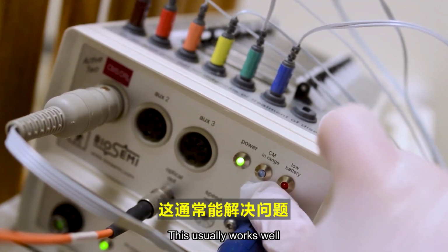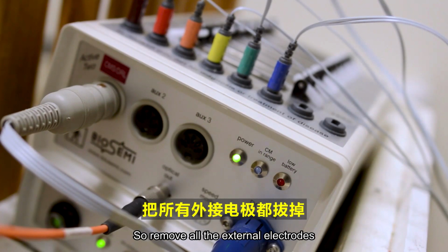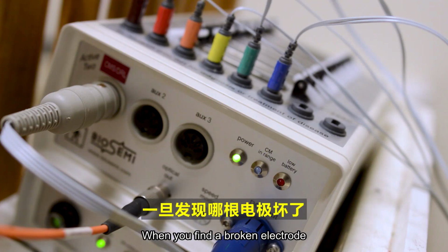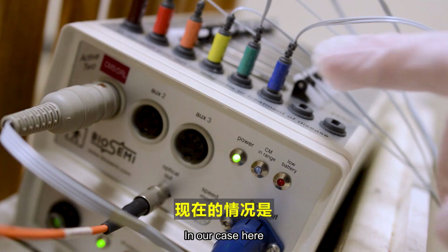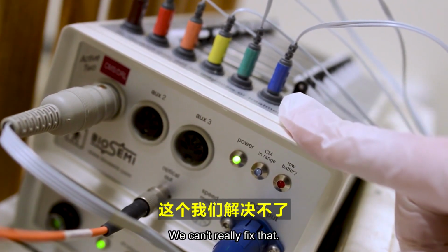This usually works well, but it could be the case that the reference continues blinking. This could be because one of the other electrodes might be malfunctioning. So remove all the external electrodes and add them in one by one, checking if the blue light stops blinking. When you find a broken electrode, just remove it and replace it with another one. In our case here, it turns out that our styrofoam head does not really have brain activity, so this is why the light flickers. We can't really fix that.